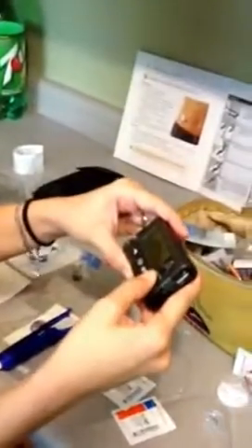I'm going to take my pump and rewind it and take the old one out. Set that in the trash pile. While that's rewinding, I'll open up the new quick set — I like the quick set. We're going to connect the new vial of insulin to the end here. There are definitely some little bubbles still in there, but it's okay, we'll get them out. We're going to insert it into the pump.